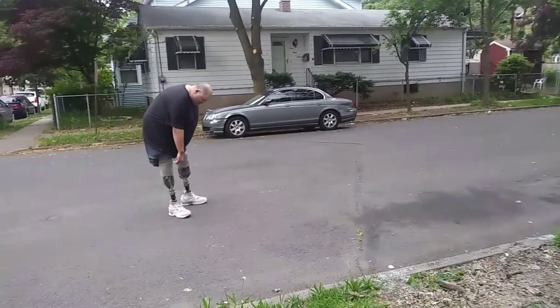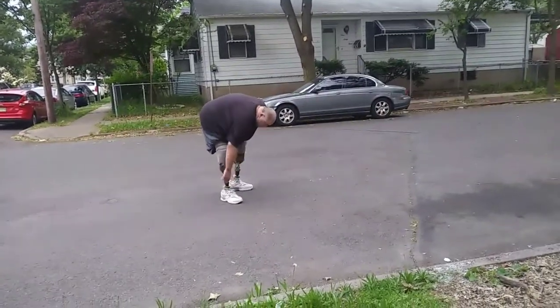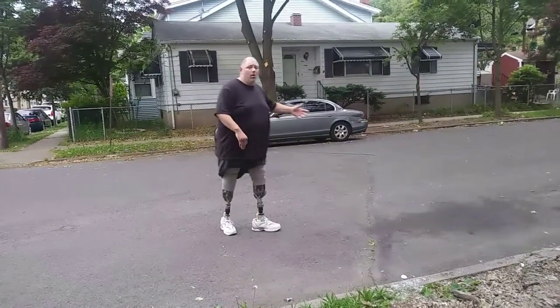This little piece right here allows for turning. It also makes it like you have an anchor on this, which is really good if you're an amputee. But I'm going to walk up and back.